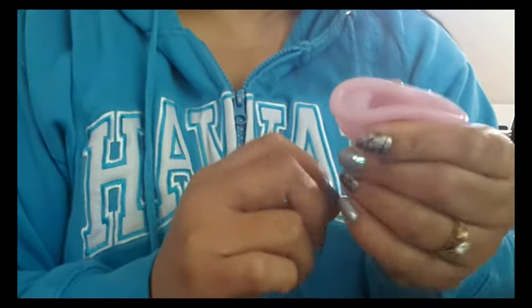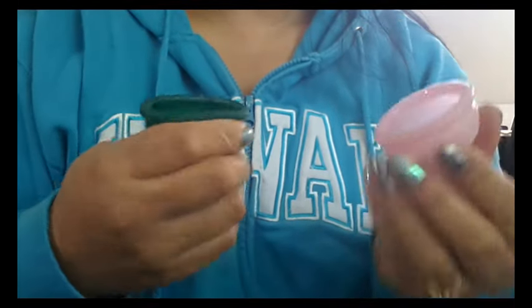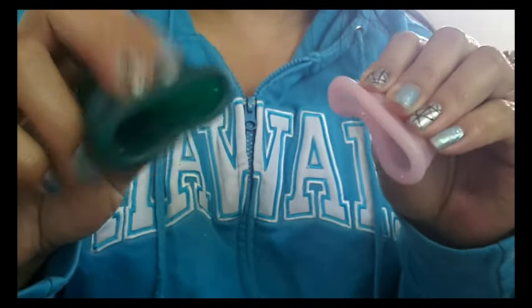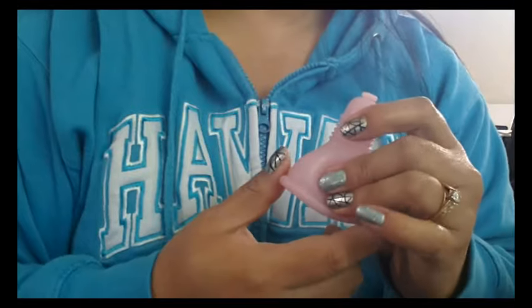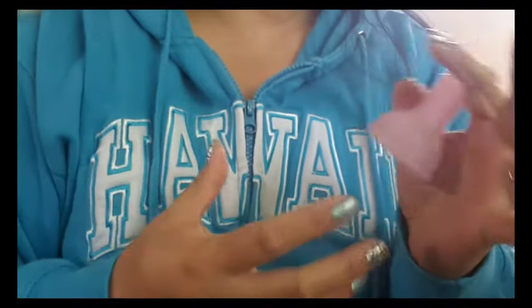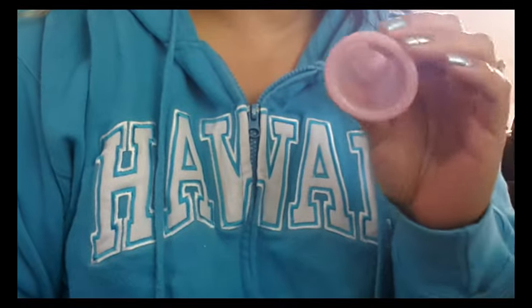The feeling of this kind of feels a little bit plastic-y. The closest cup I have to what it feels like when touching it is the Love Your Body cup. Some silicones — and I know this is a silicone-TPE mix — just have a different feel. Some of them feel more plastic-y than others, and I'm not saying it's a good thing or a bad thing, just noting that.